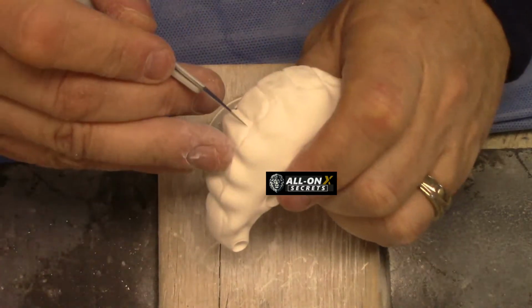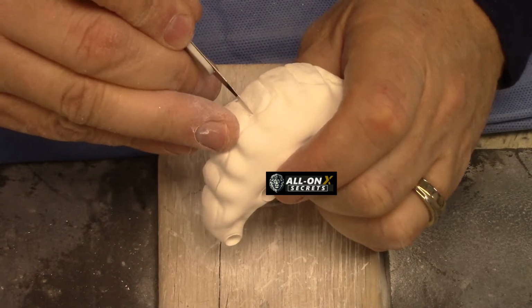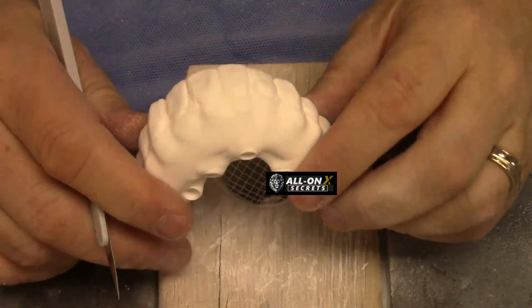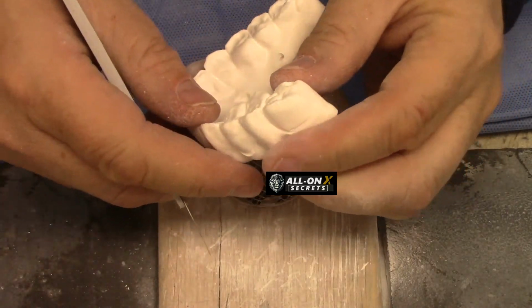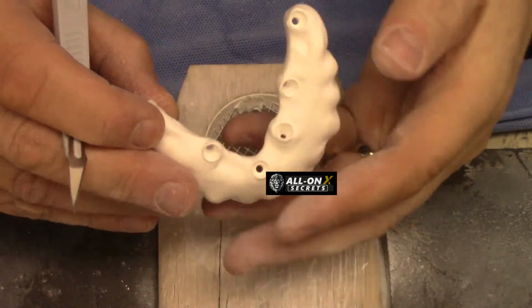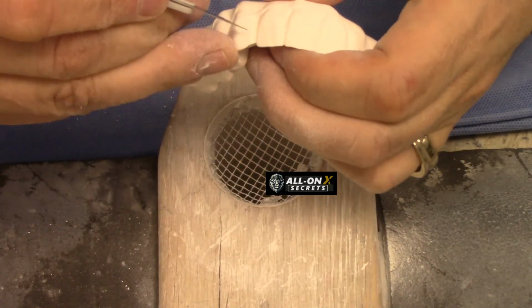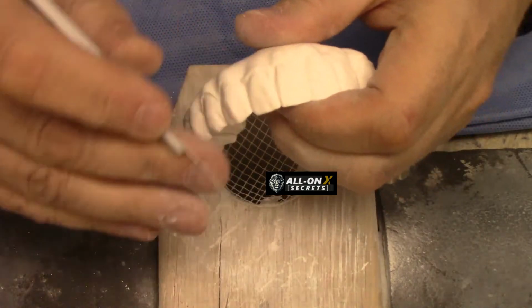But what it also allows you to do, if you're in charge of the designs, is sometimes be a little faster, knowing that it might be easier for you just to do it in what we call green state. This is a green state zirconia, meaning it's been milled, but it hasn't been sintered. Okay. And when it's in green state, you can still carve it. You can still adjust it a little bit.